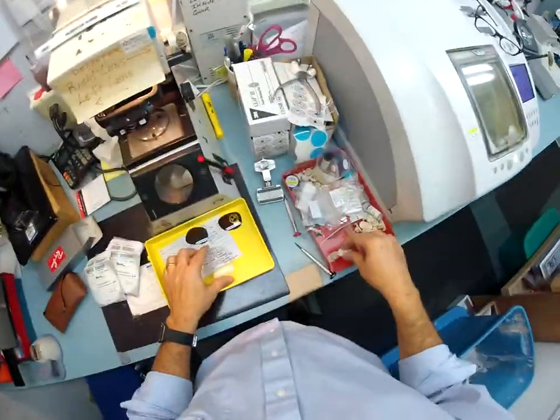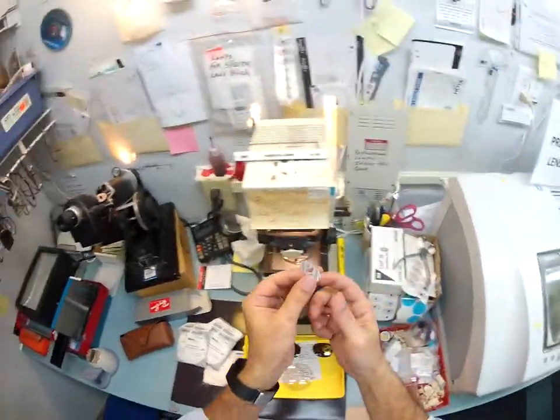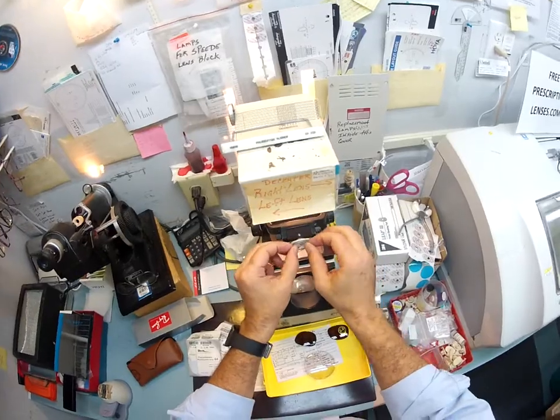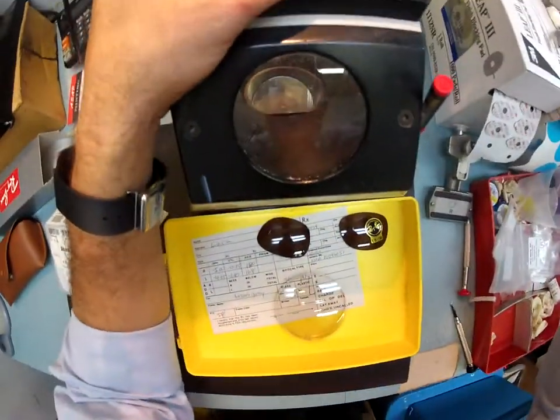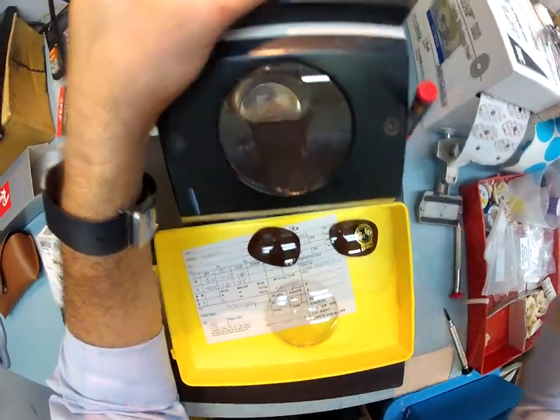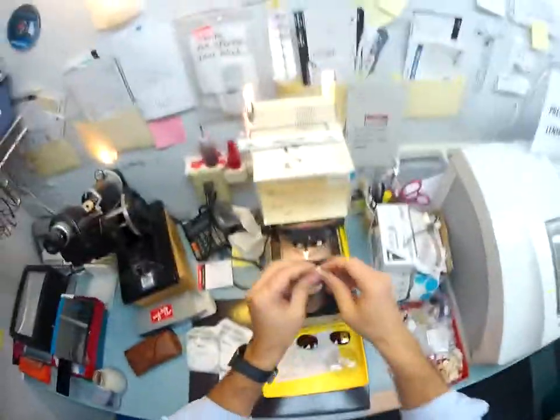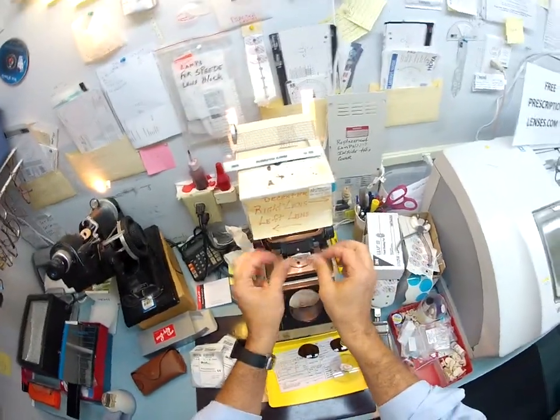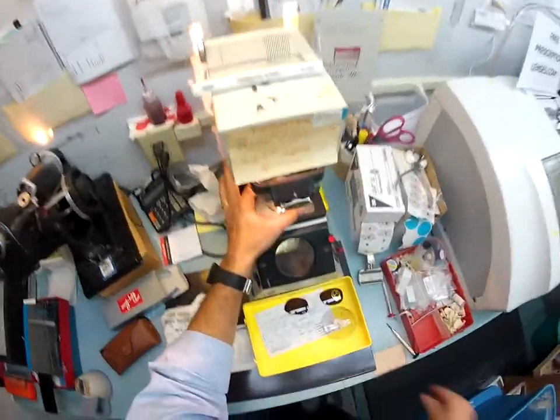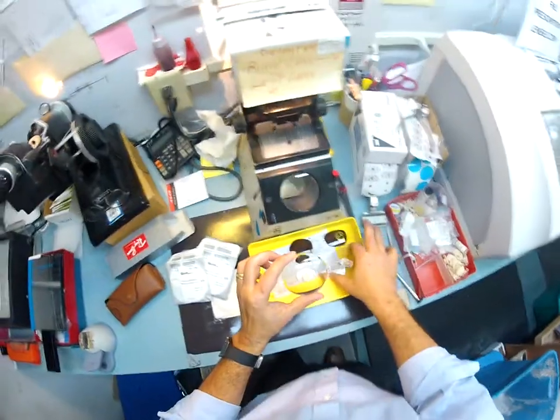I've got to put this into a lathe, so I need to put a block on it — as it's called. I'm gonna use a double-sided adhesive sticker. This is where I line up your optical center into my crosshairs — just like the crosshairs of a scope — and check the vertical and the horizontal to make sure everything is lined up perfectly.